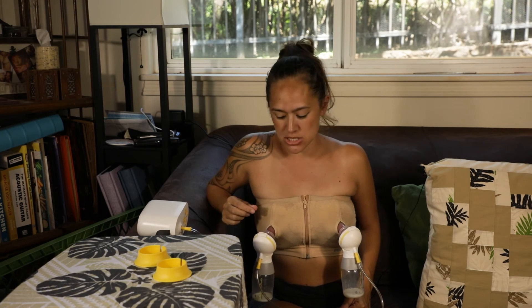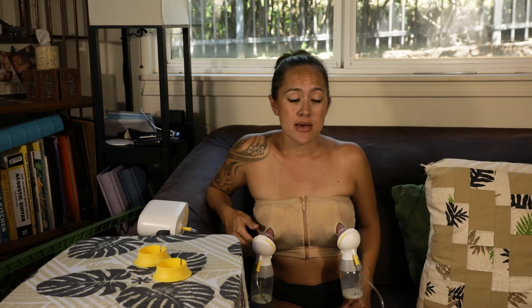The reason I like these a lot better than the standard flanges or just hard plastic is because they're really gentle on the nipple itself. I found that with plastic flanges I was getting a lot more friction blisters and a lot of nipple damage because of that. So with these it allowed just more of a natural flow and connection to the pump itself, and it did extract a lot more milk for me, along with comfortability, better seal, all the fun things.